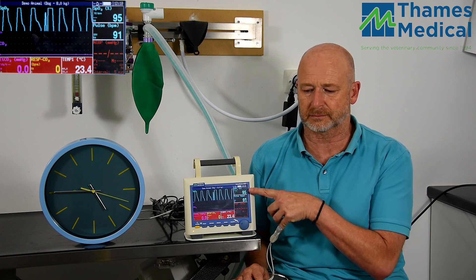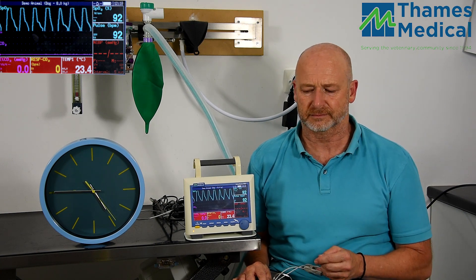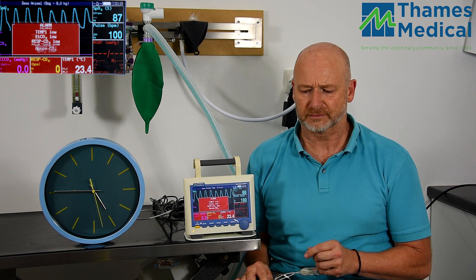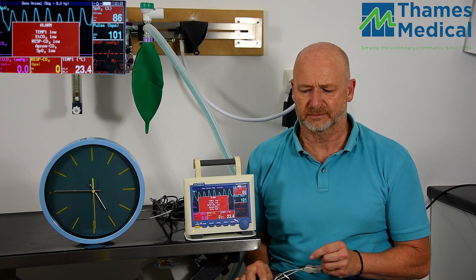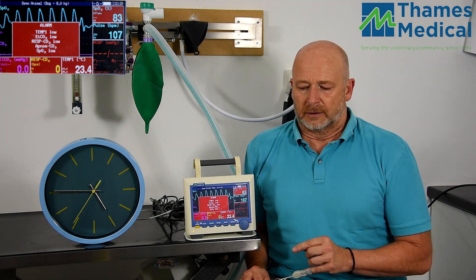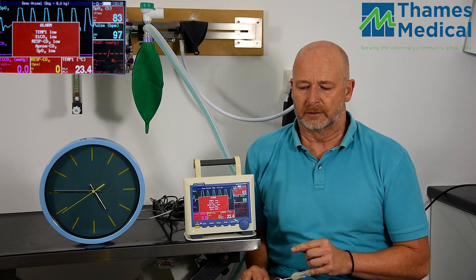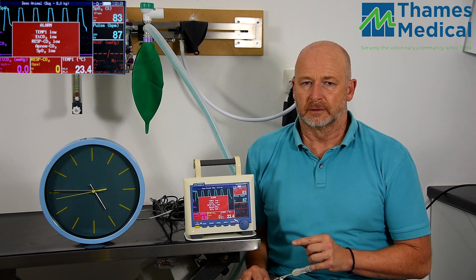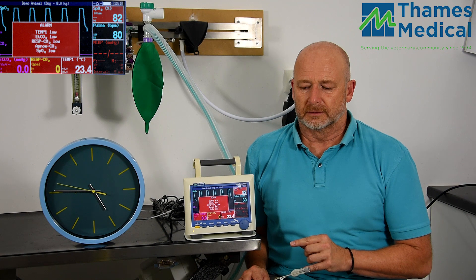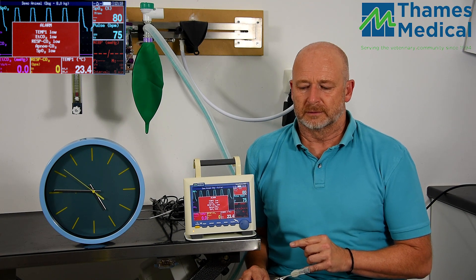Note the saturation is dropping and my heart rate is rising. I'm just about to take a breath. Even after I've started breathing, you'll note that the saturation continues to fall.